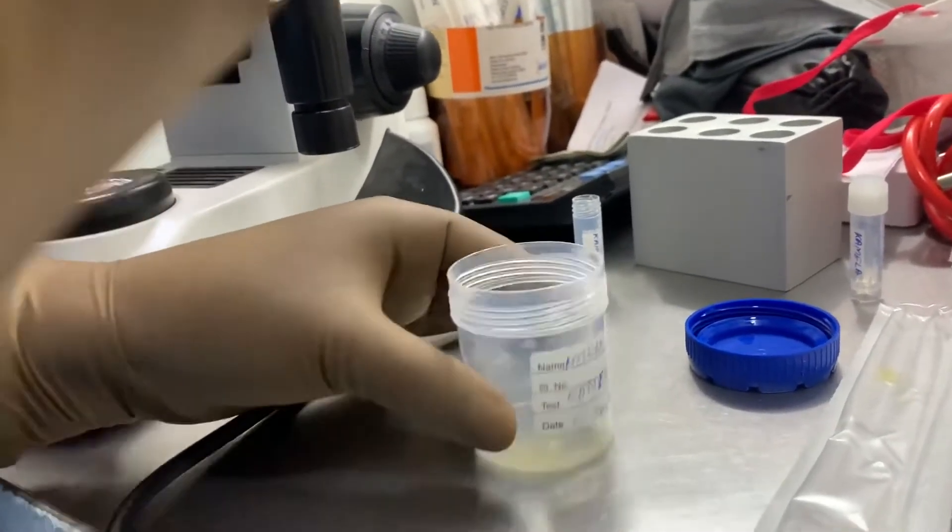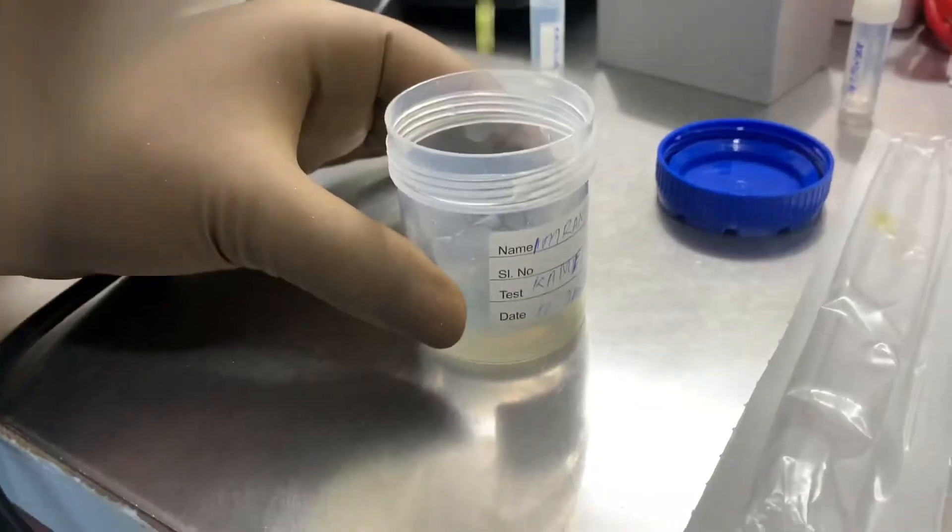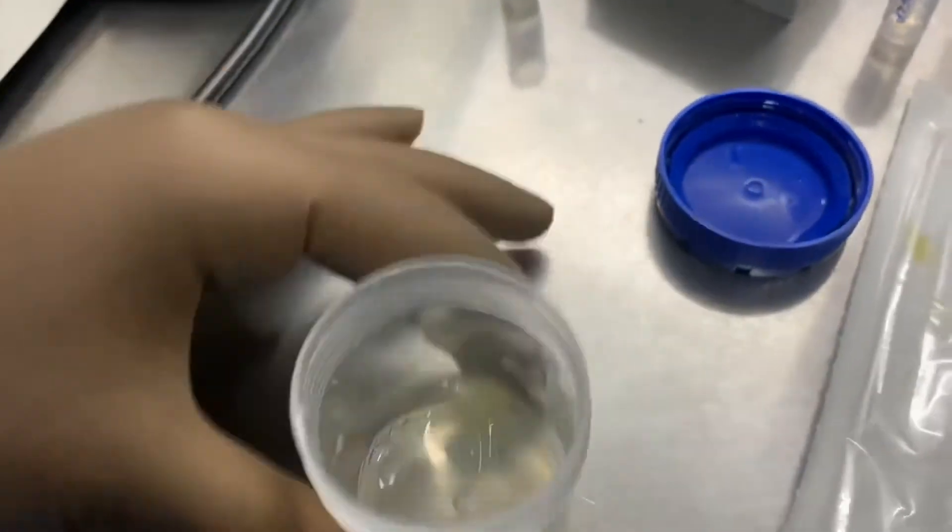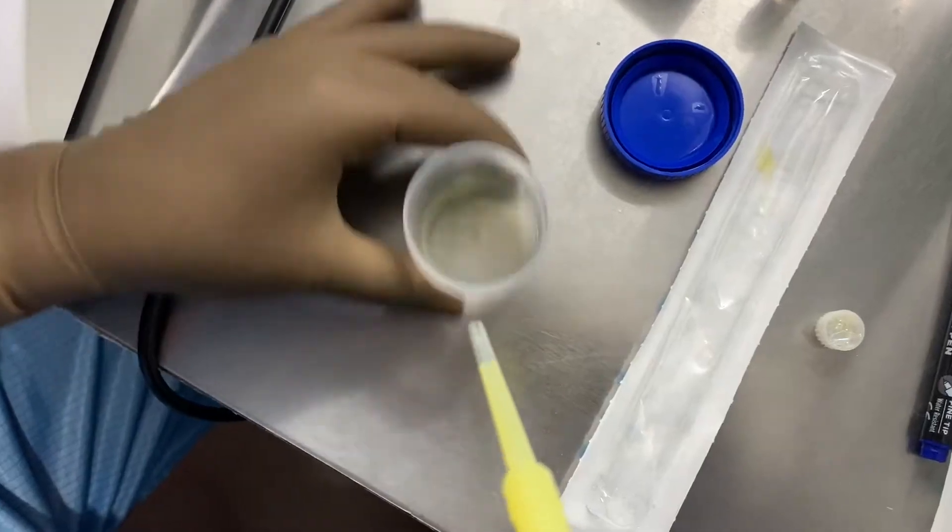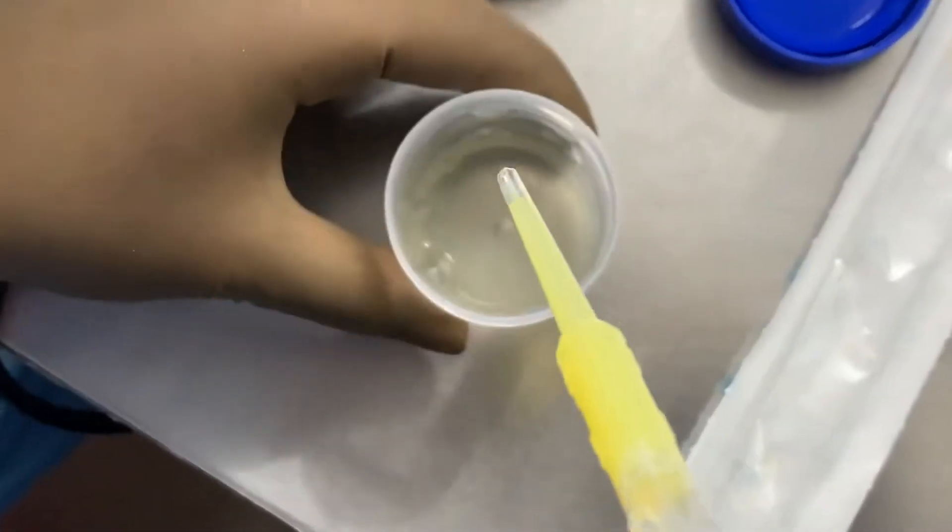Otherwise the semen would be diluted very fast with this kind of media. And this cryoprotectant would give chemical shock to the sperm. So the sperm survivability won't be good.